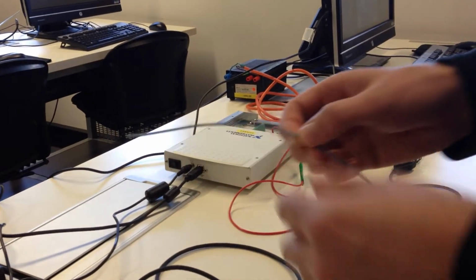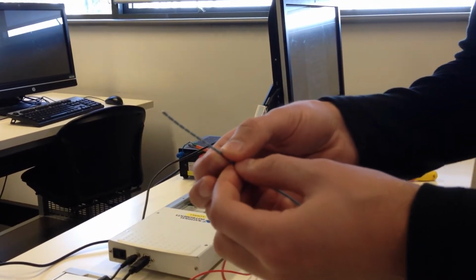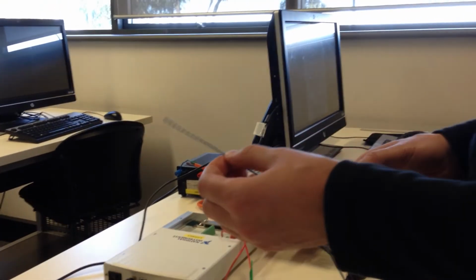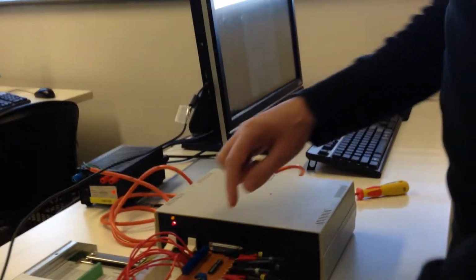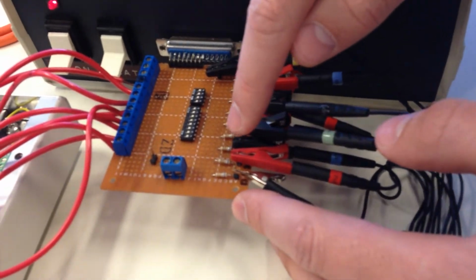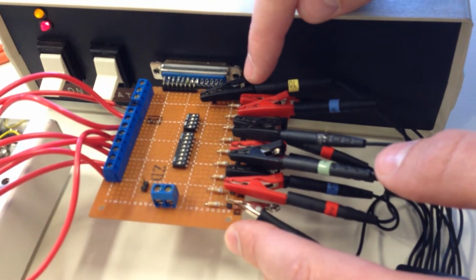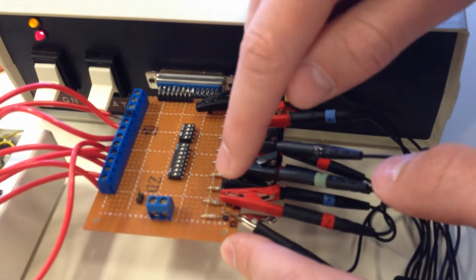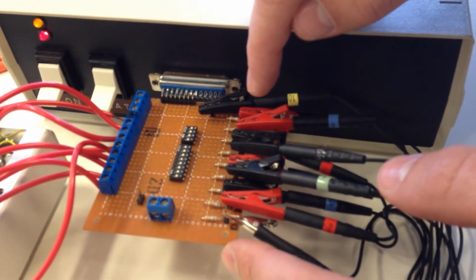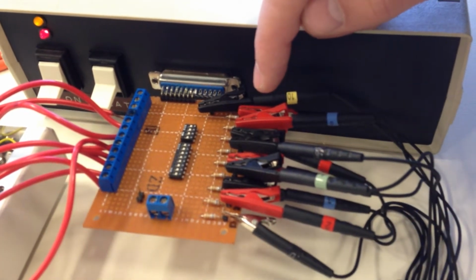Before we do that, we want to calibrate what the current actually is. I promise you that it's 50 microamps, but I guarantee you when you do the experiment it won't come out to be exactly 50 microamps. In order to do that, we have this sort of phantom or dummy resistor ladder set up. These resistors are meant to simulate the cylindrical segments of fluid in the ventricle. There are 9 resistors, and you'll use the middle 7, which will represent the 7 differential voltages between the 8 electrodes in the catheter.